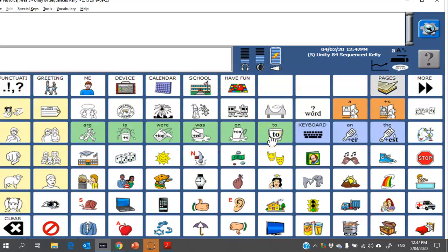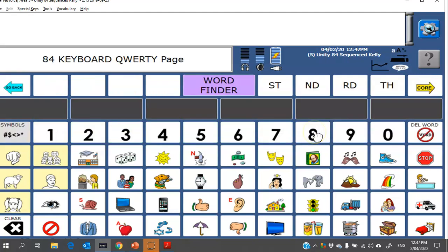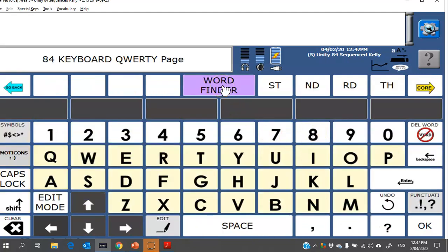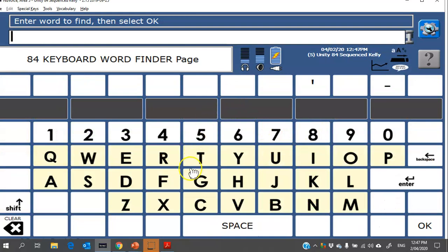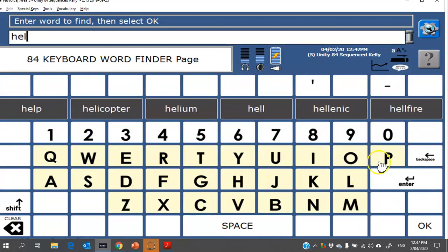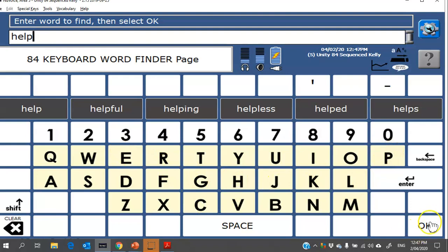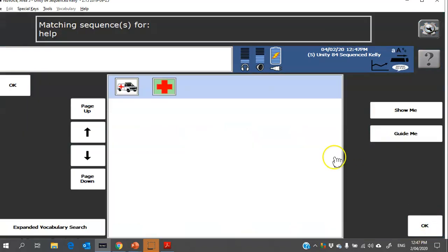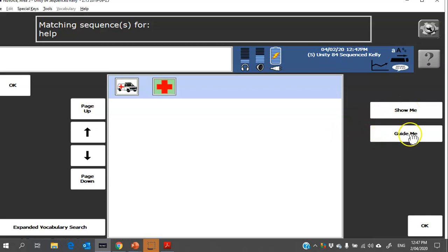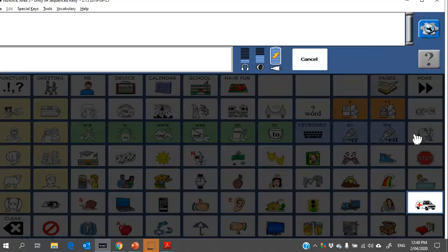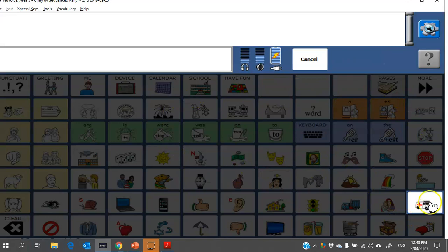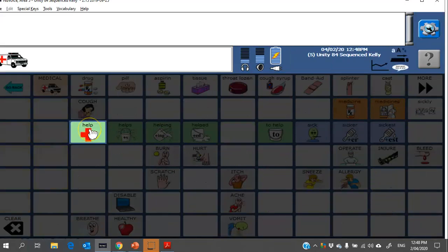Okay, so once those two settings are good to go, the next thing I would do is make sure I know how to use the Word Finder and I would teach the important communication partners how to use the Word Finder as well. This is a handy tool, particularly if people aren't familiar with Unity or LAMP, helping them to locate the words within the vocabulary. So normally it's located under the keyboard and then Word Finder, and from here I can type in any word and click OK and it will tell me the icon sequence. From here I've got two options: Show Me will just take me through the steps to find that word. I particularly like to use Guide Me and to work with the individual to help them find the word. So if you click on Guide Me, what it will do is it will blank out the rest of the vocabulary and just show where that particular sequence is to find that word.